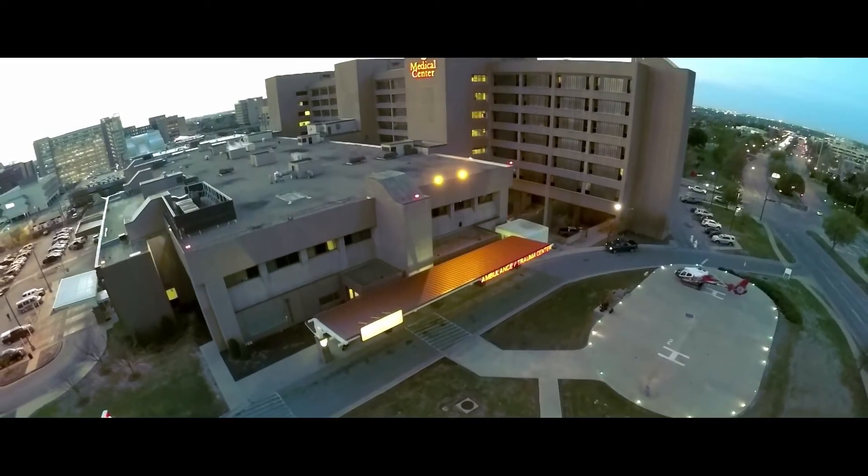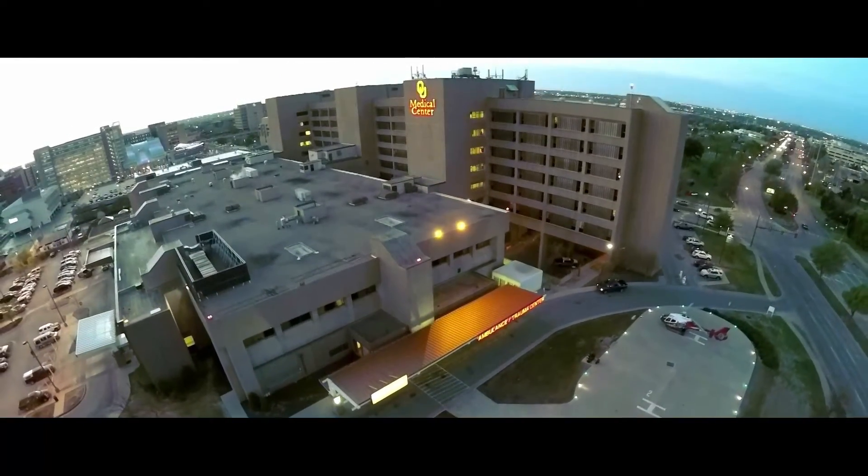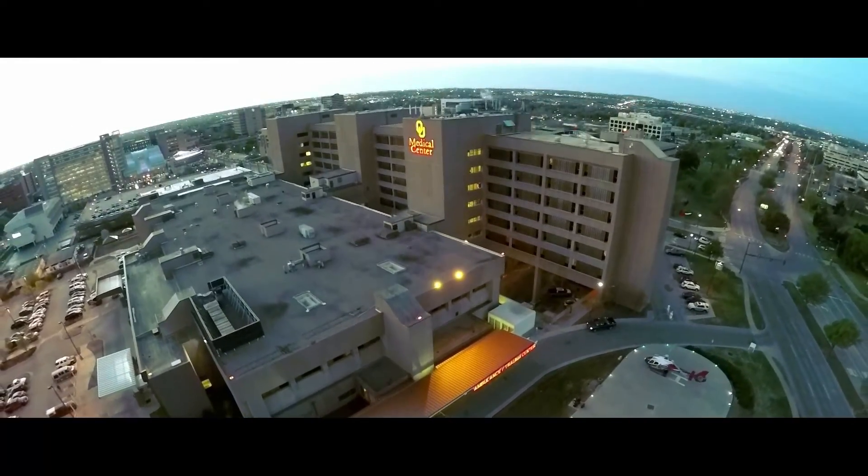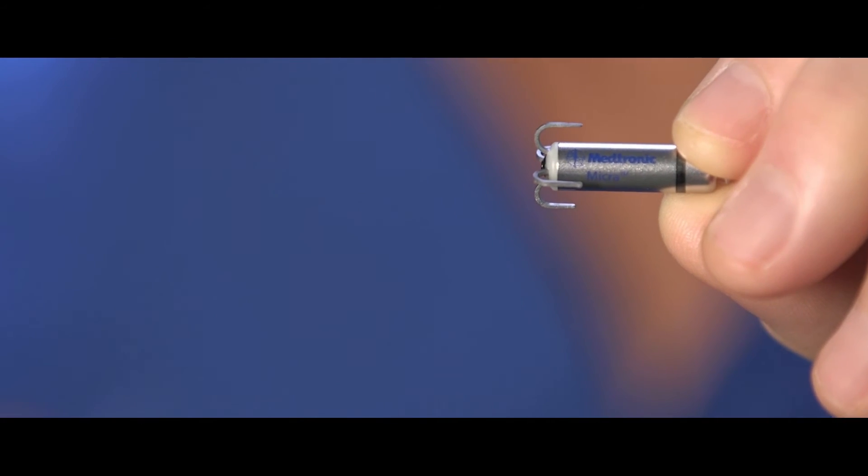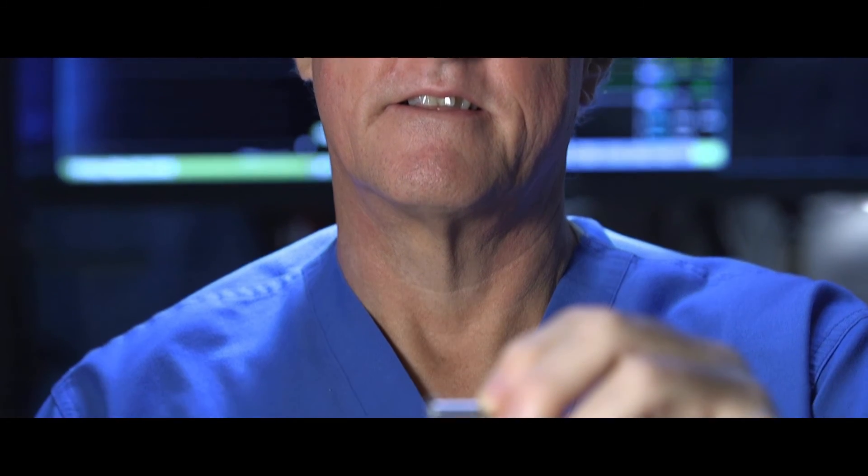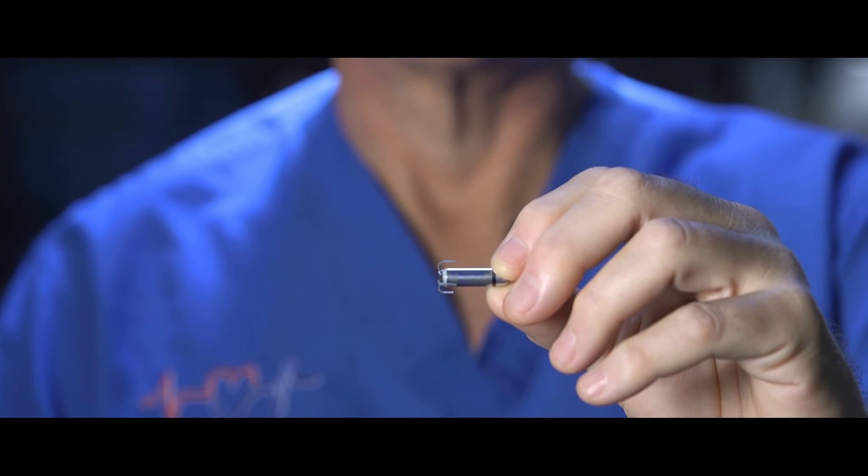The Cardiovascular Institute here at OU Medicine was selected to be one of the leading and first investigative sites for the device. It's still investigative. It turns out that we are one of the leaders of this worldwide study. There have been now 700 implants worldwide. The University of Oklahoma and OU Medicine have really been the leaders in this project from the beginning.